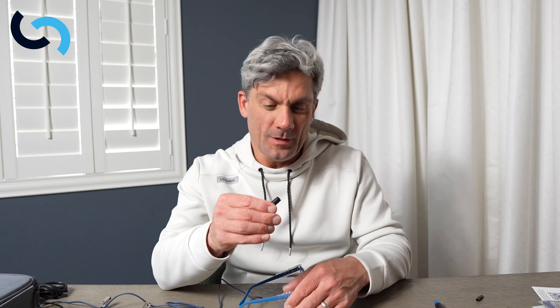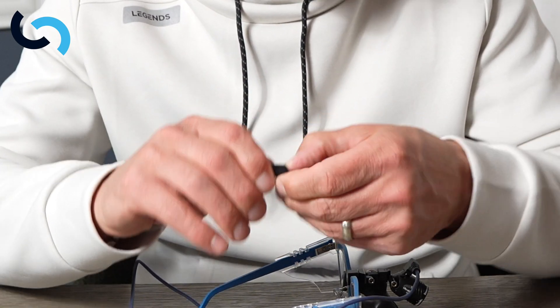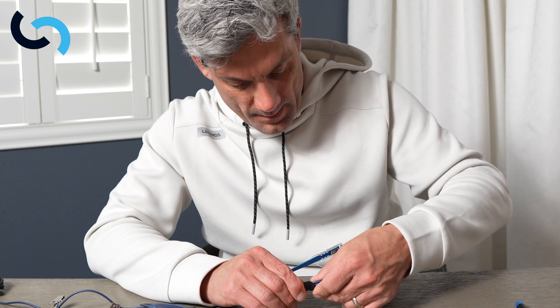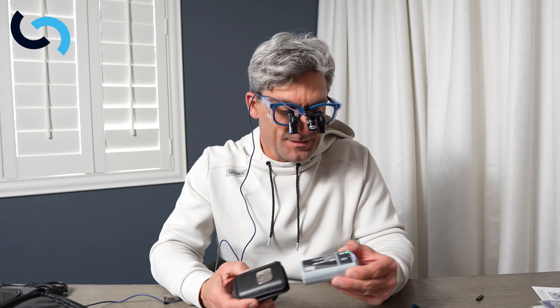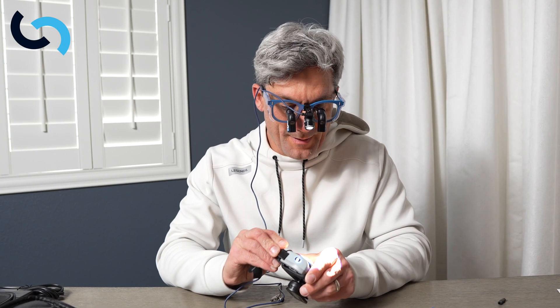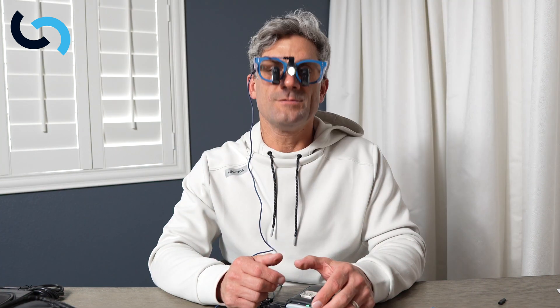How do we power the light? This will connect right here and it comes with a cable wrap that unwinds and rewinds. Let's get that on there and put the cable on the outside — that holds the cable in place. Let's power this on and see what it looks like. Super clean design, I just love it. Everything feels really high quality. Of course you pay for the high quality, but it's nice when you pay for something good. And then this looks like just a USB plug-in. Let's go — you probably can't see the light on camera, but it's bright.